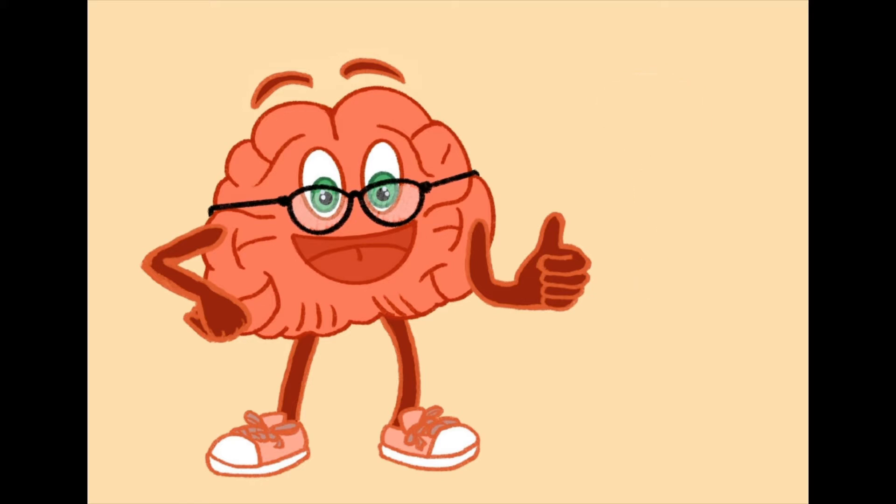There are various techniques that help brain researchers to look at your brain. Some use big, strong magnets. Others use light to look at your brain.